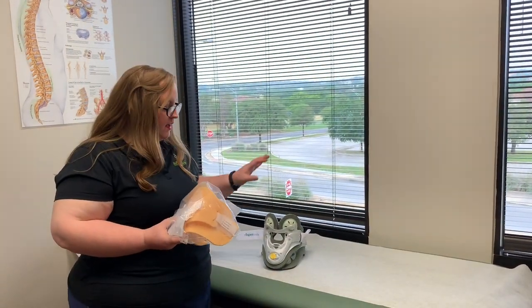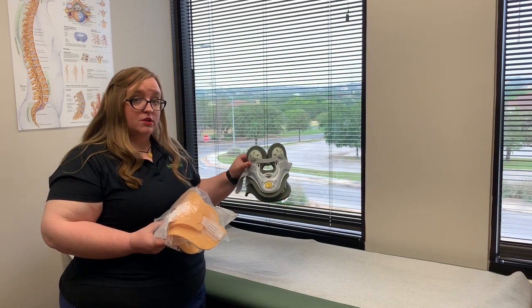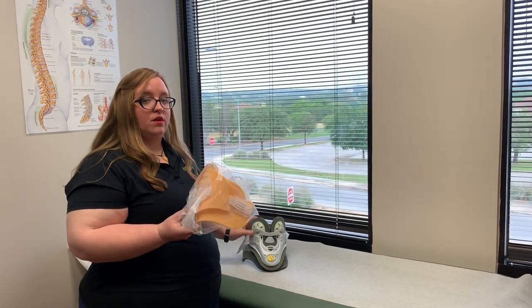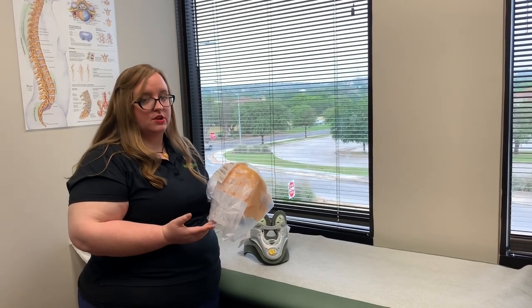Patients will always receive two collars. This is the one that will be worn 24 hours a day for at least four weeks following surgery. This one is to be worn whenever you shower. You wear it the same way — it just doesn't require any adjustments.